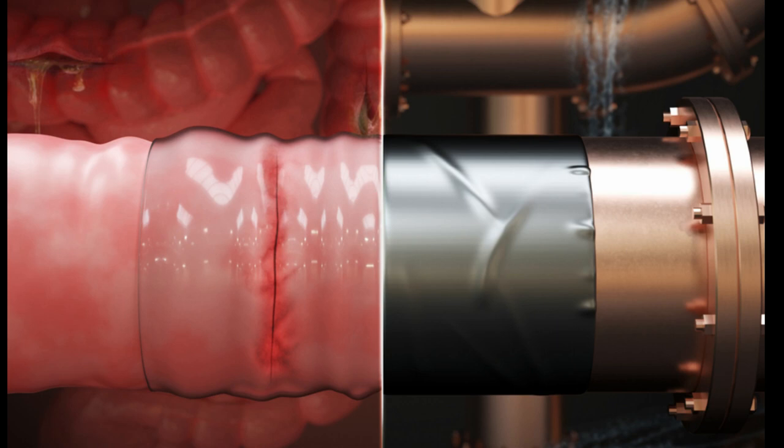The team envisions the surgical sticky patch could one day be stocked in operating rooms and used as a fast and safe alternative or reinforcement to hand-sewn sutures to repair leaks and tears in the gut and other biological tissues.